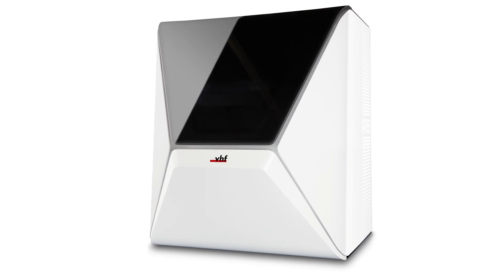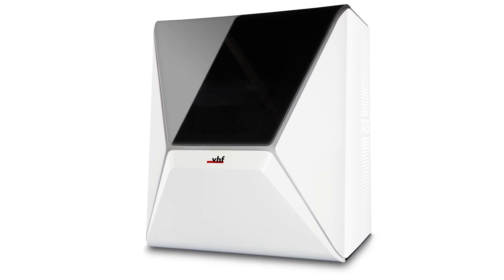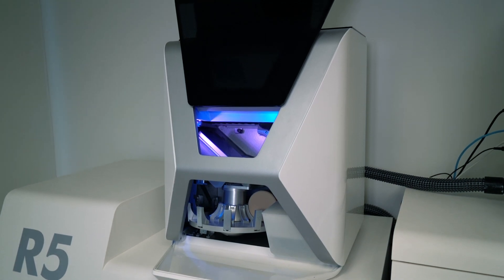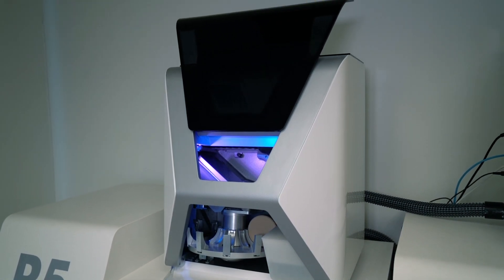And so we're in an industry where sometimes bigger is better. And that's where the R5 comes in. There's been a lot of buzz in the industry about multi disk milling, milling overnight, maybe more for a production center or production labs. Can you give us some highlights on the R5 that's coming soon? Yes, bigger is better. But you will see here that all of our machines have a small footprint, although they are very heavy, very robust build with a massive aluminum cast that actually makes the mill so precise and so predictable.